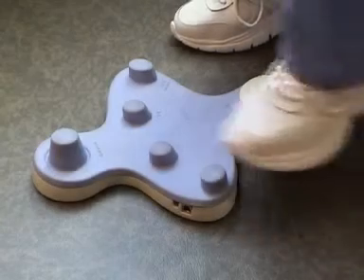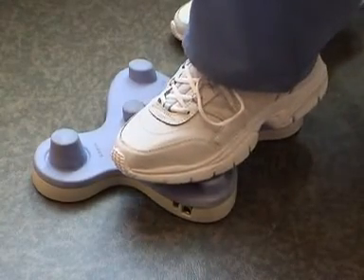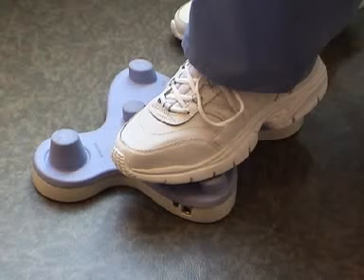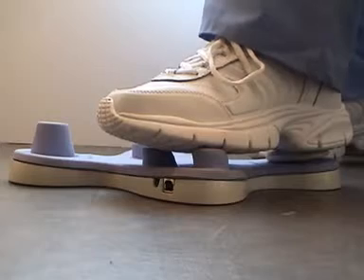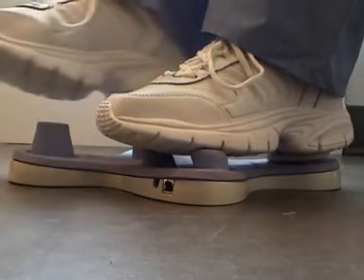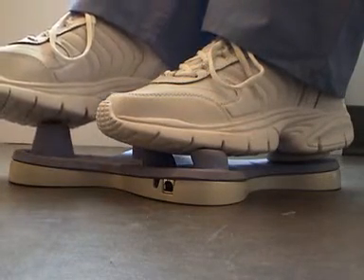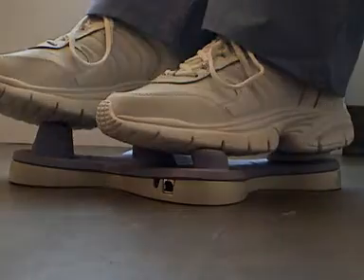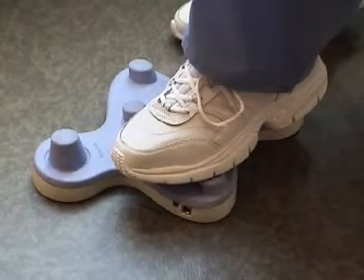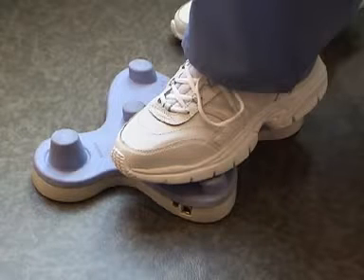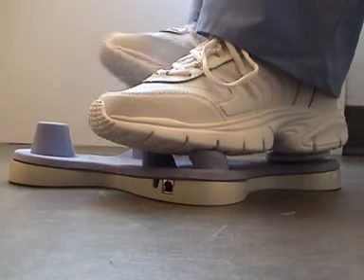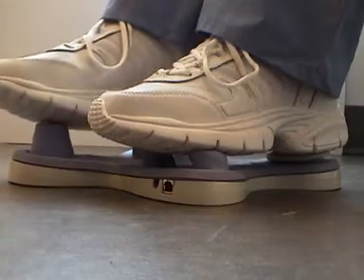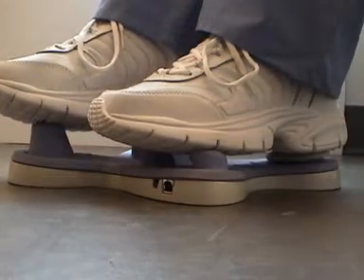When you're first starting out you might want the mouse a little bit slower. To slow down the mouse press the left two buttons down and hold them there and at the same time press down on the joystick with your other foot. As you gain more experience you'll probably want the mouse to go a little bit faster. To speed up the mouse press the left two buttons down and then push up on the joystick with your other foot.